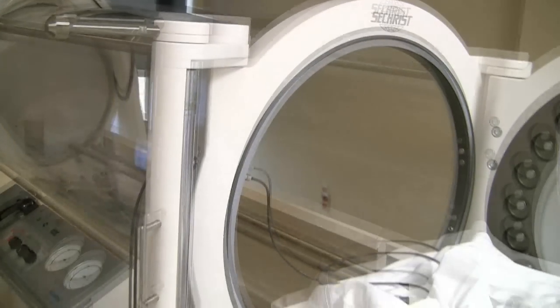Hi, I'm Billy Jones. You're here to try out what's called a hyperbaric oxygen treatment, is that correct? Correct. I see they've got you ready to go into this chamber here. Are you nervous? I'm excited, ready to start healing.